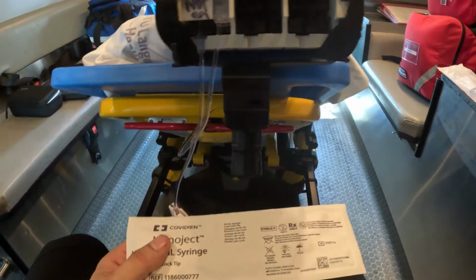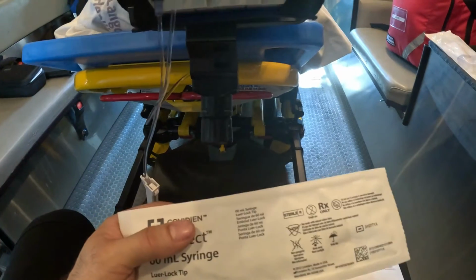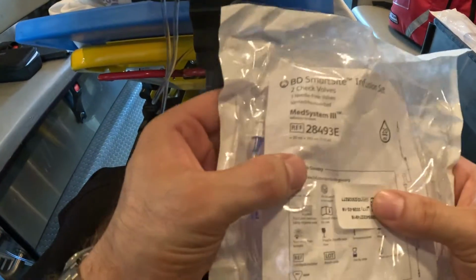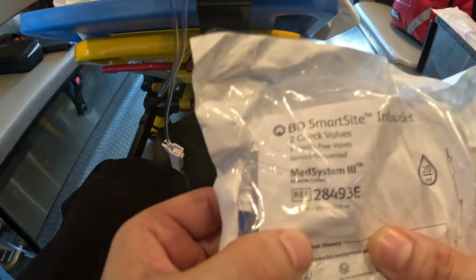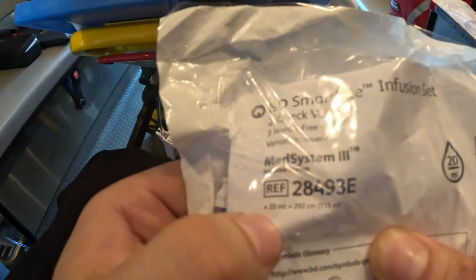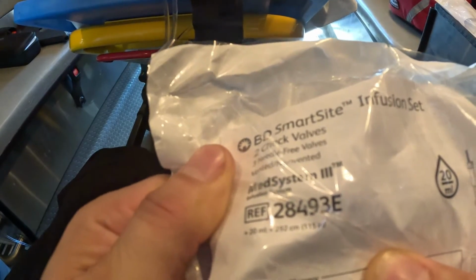And you're also going to need a half set, because the syringes can only be flushed and employed with a half set. So what's the difference between a full set and a half set? I'll show you. Here I'm holding 2 administration sets. The first one, you notice, has a drip chamber over here, so this is a full set. And the other very important factor, for me to flush this full set, I need 20 mLs of my drug. So you see 20 mLs. So this is a full set.